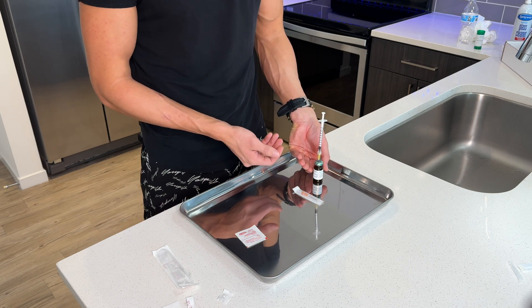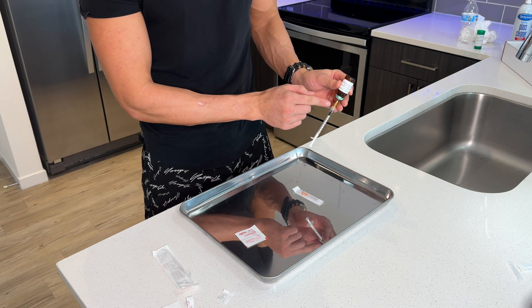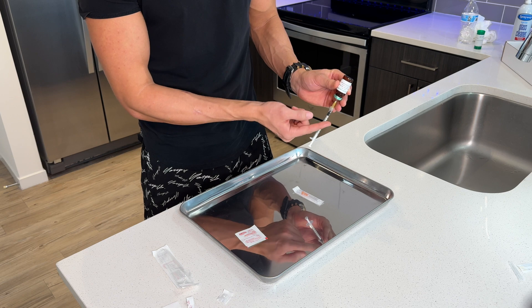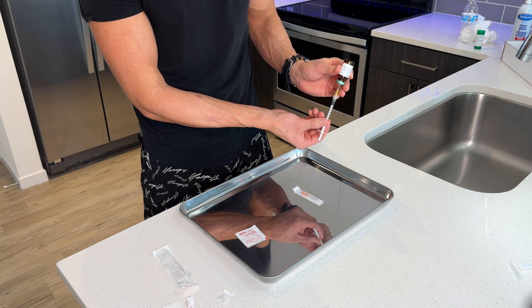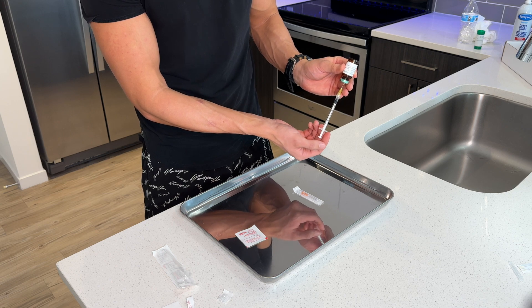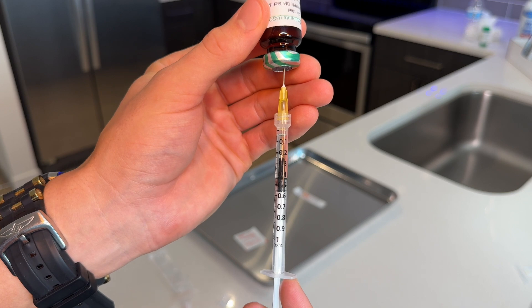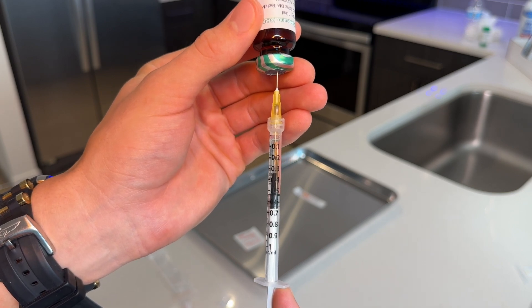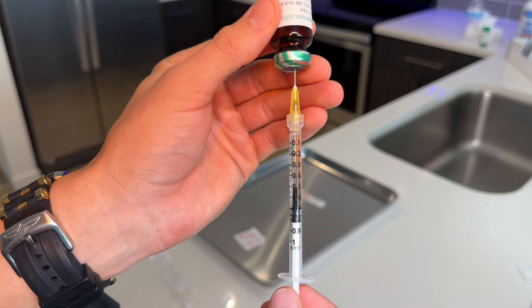At this point, we're gonna flip the vial and the needle upside down. It's important to know when you put the needle in the vial, you wanna make sure it's inside the liquid and doesn't press through to the air side. So we're gonna scoot back the needle a little bit to make sure it's inside the liquid. Now we're ready to draw back our testosterone, and we're actually gonna draw past the 0.5 mark — right around the 0.7 mark — because we're gonna have a little bit of air at the top that we wanna move out.